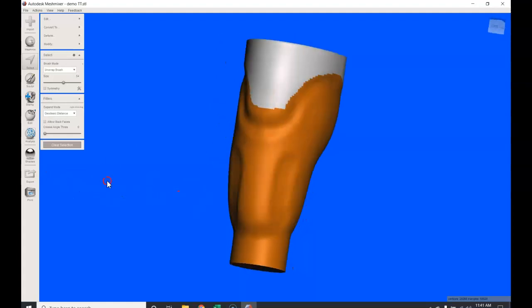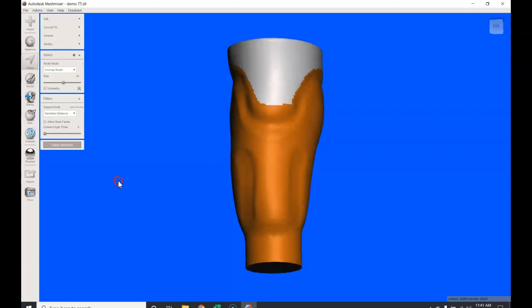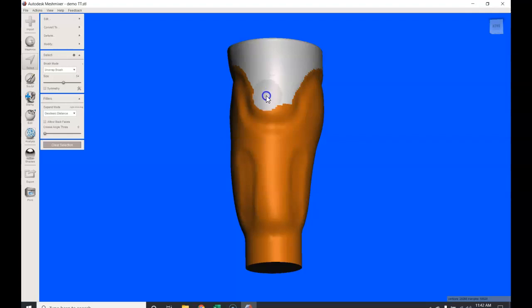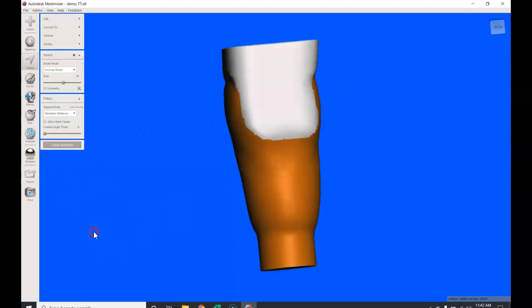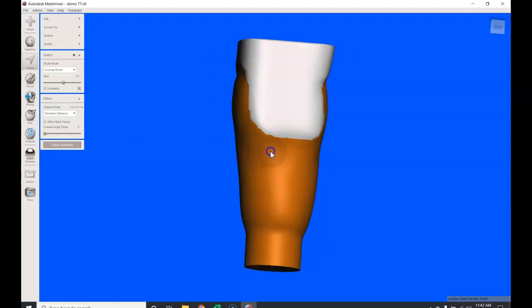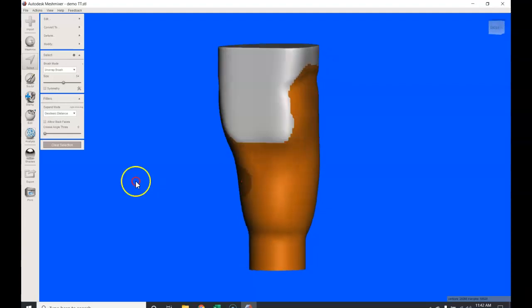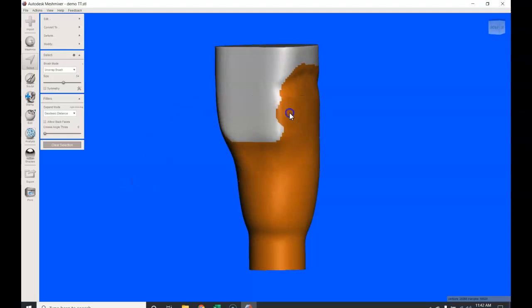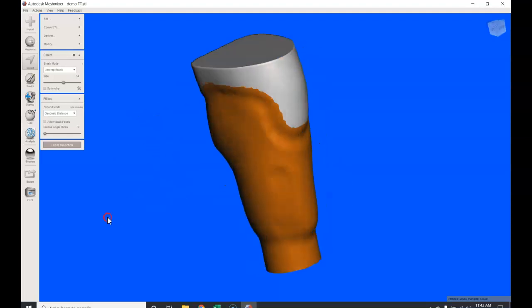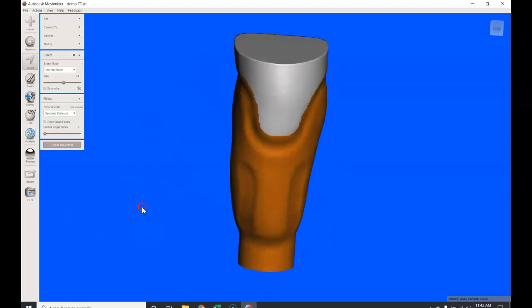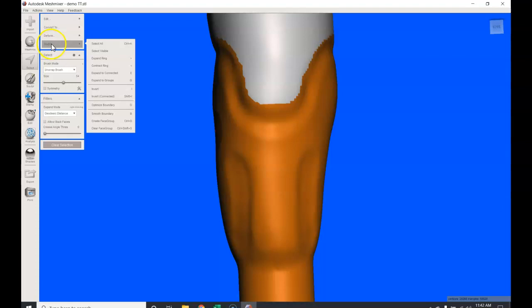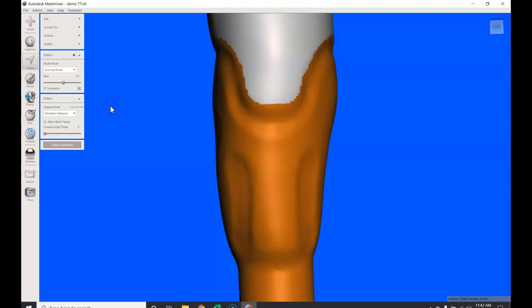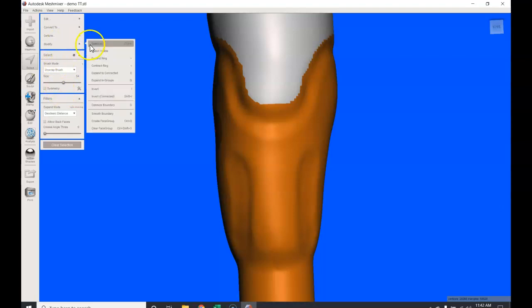Now, the other thing you can do: if you want to erase, you're going to hit this shift button, hit the left mouse button, and you are going to just erase some of the areas you may have over-painted. So for instance, I'd like to bring this up a little bit. Okay, fill that little triangle in. This here, I'm going to fill it in, but now I'm going to shift left mouse button; I'm going to sort of do a better transition. Okay, that looks pretty good. Now what we want to do is fix these boundaries, right? Okay, I'm going to go up to modify, I'm going to scroll down to optimize boundary, I'm going to left click it once. It doesn't look like anything happened, but you'll see that it does.